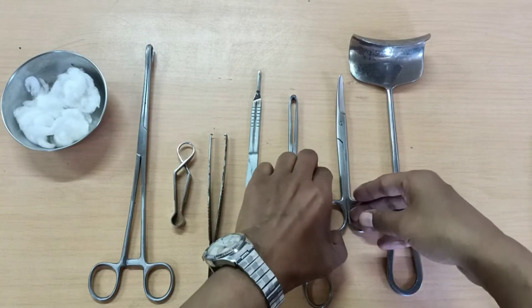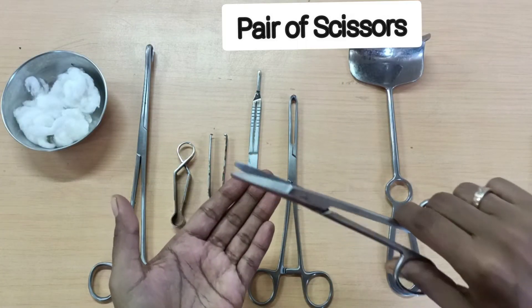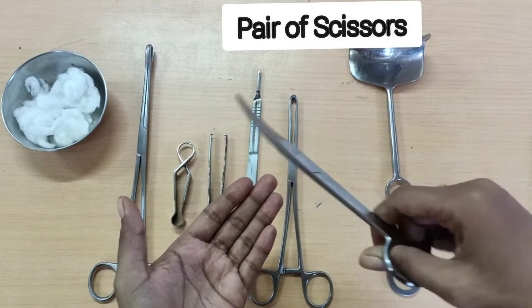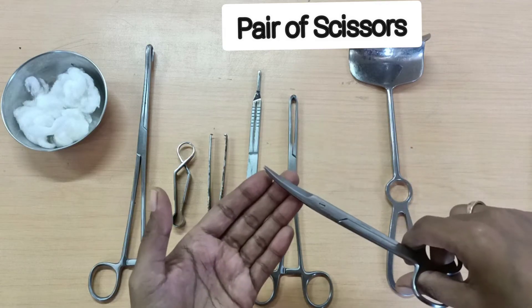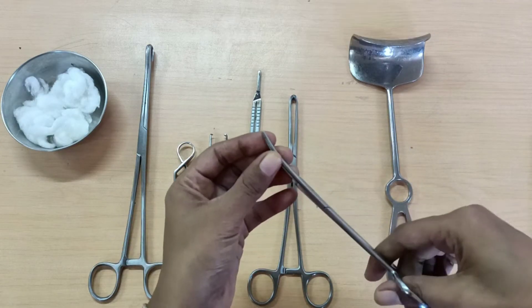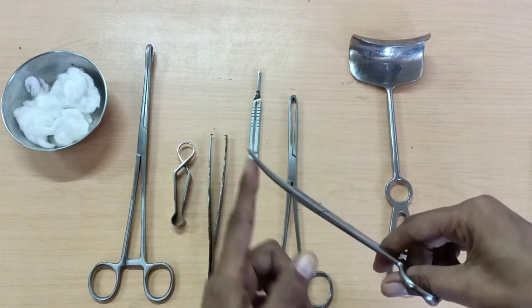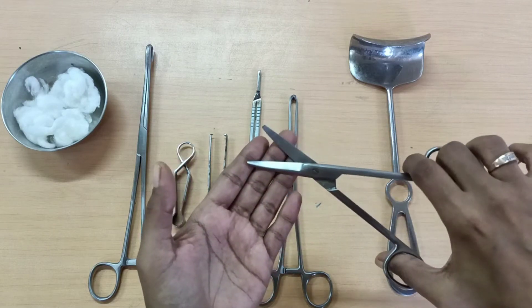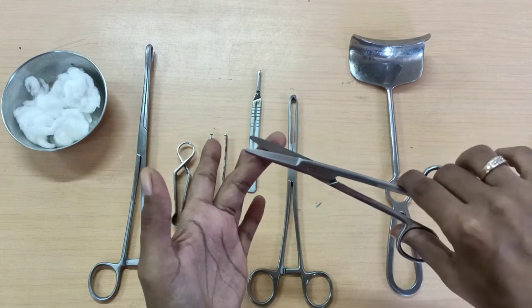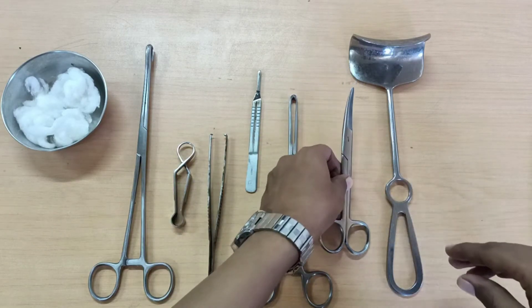Next, to incise the sheath after holding it with Alice forceps, you require a pair of scissors. Metzenbaum or Mayo scissors — scissors are of two types — and you always have to keep the point of the curved scissors cephalad.